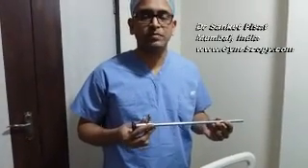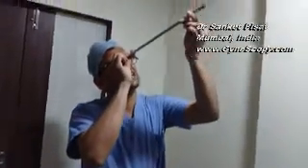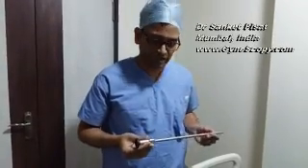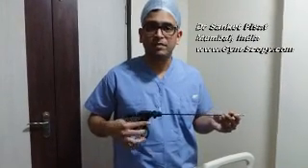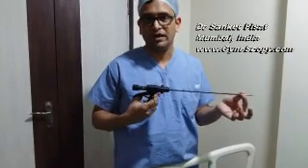Finally, when you take the endoscopy instruments on the trolley, needless to say that all endoscopy instruments need to be inspected before you actually start using them. But just some of them, for example, when you take the telescope in your hand, make sure that the telescope is working properly by holding it against the light and checking the image within the telescope, just to make out whether the lens is cracked at the proximal or distal end, which may have happened inadvertently during cleaning during the last case. Then your set of hand instruments, including your graspers and bipolar cauteries, assemble them and make sure that the instrument turns freely in your hand.